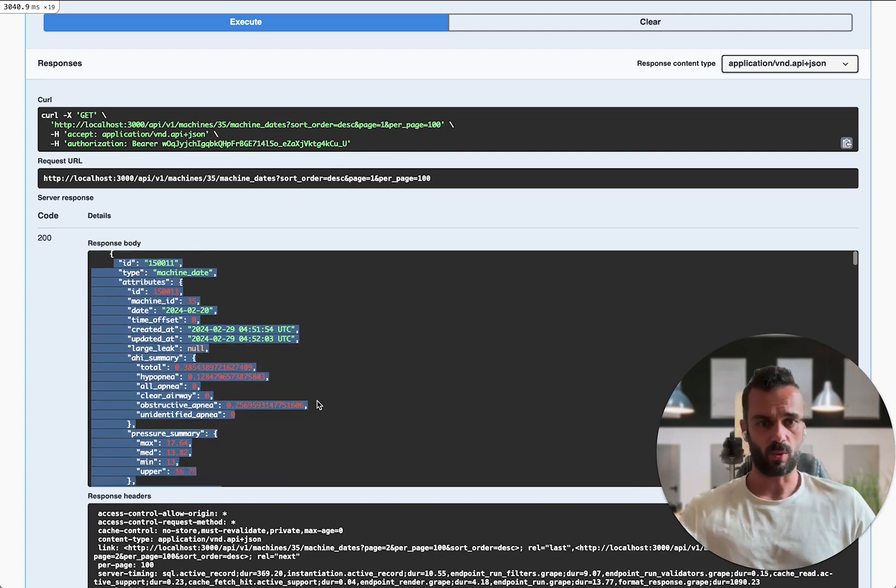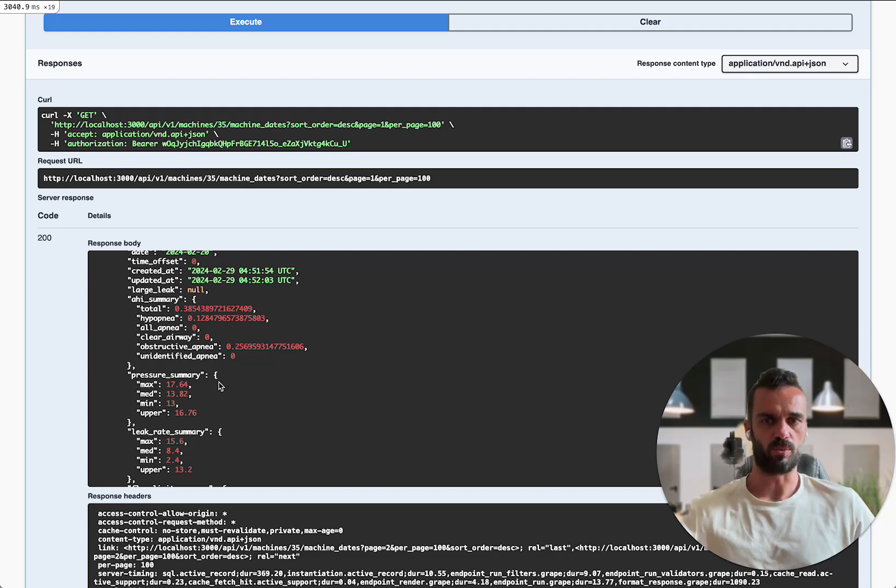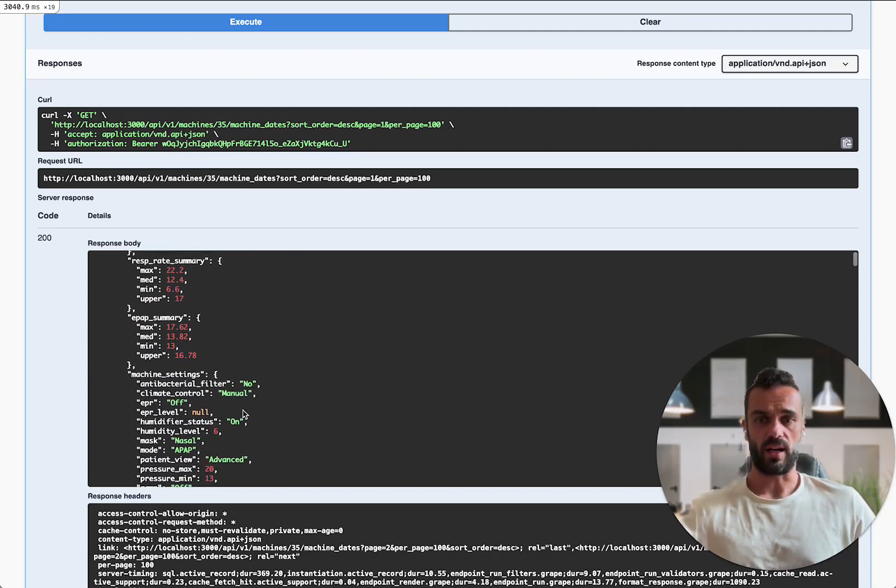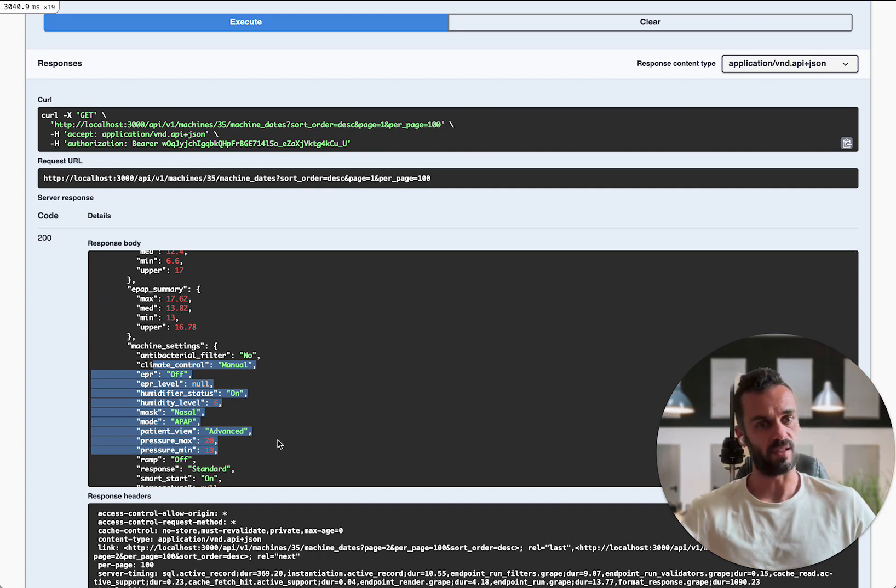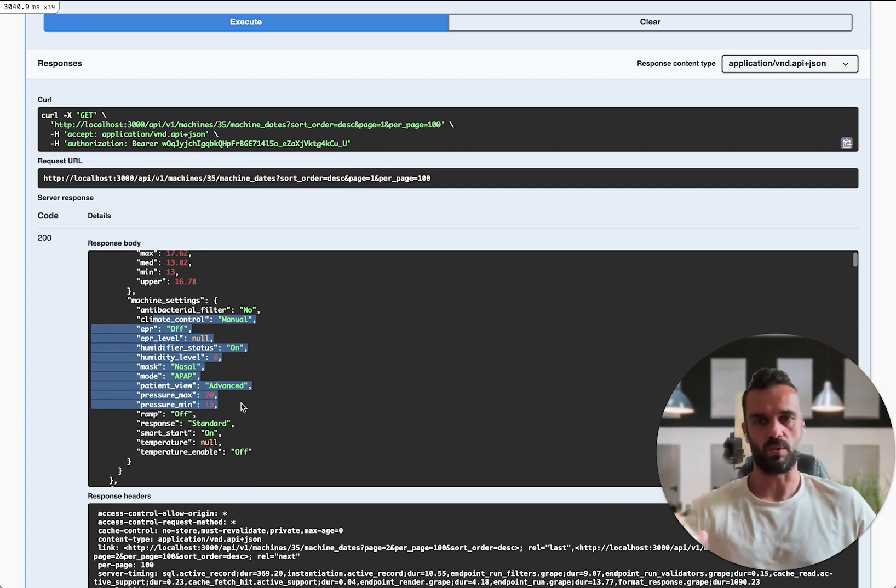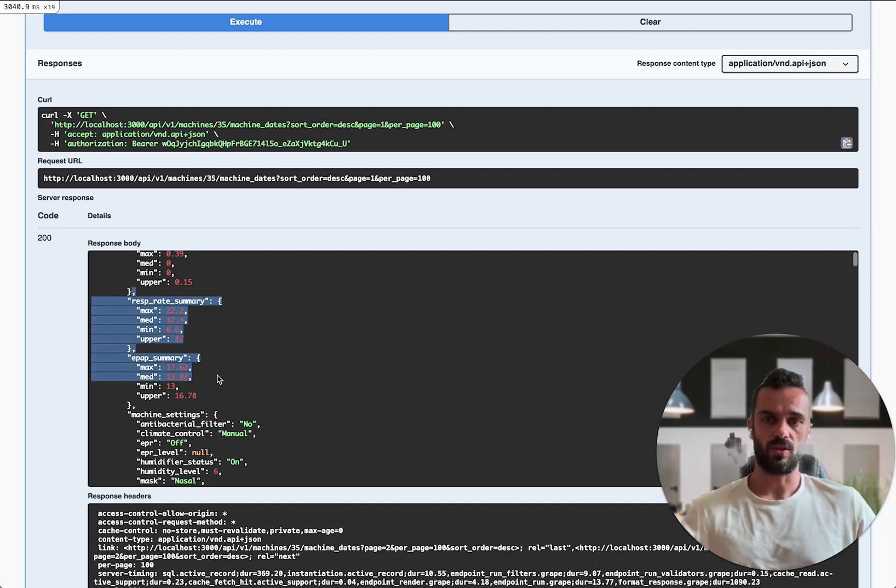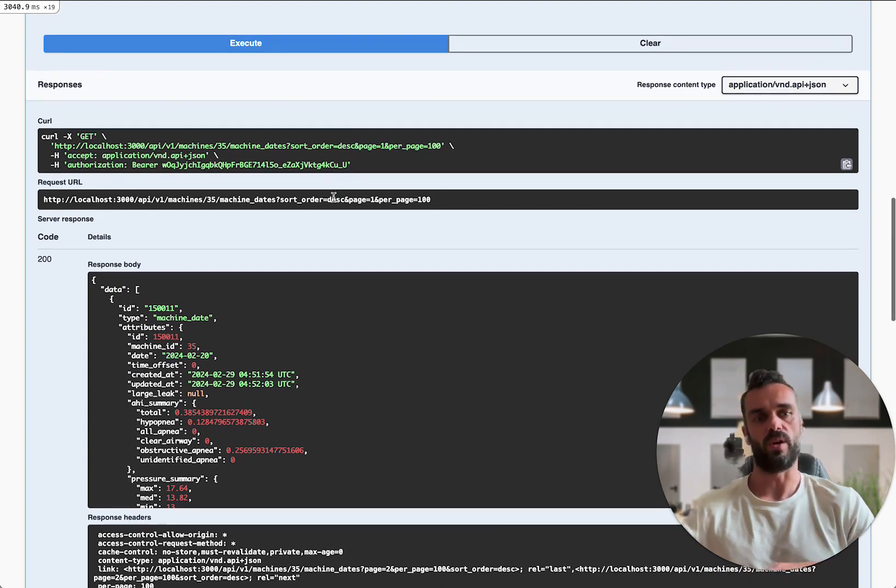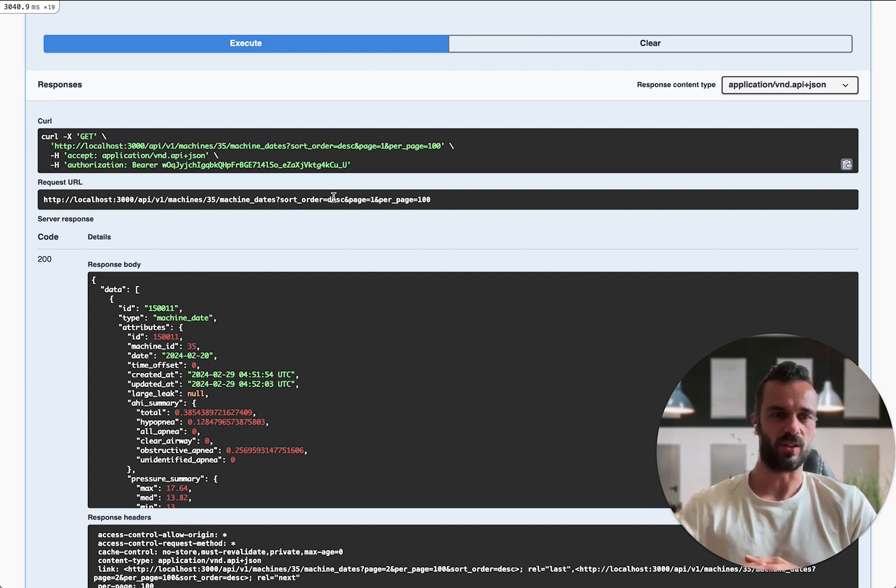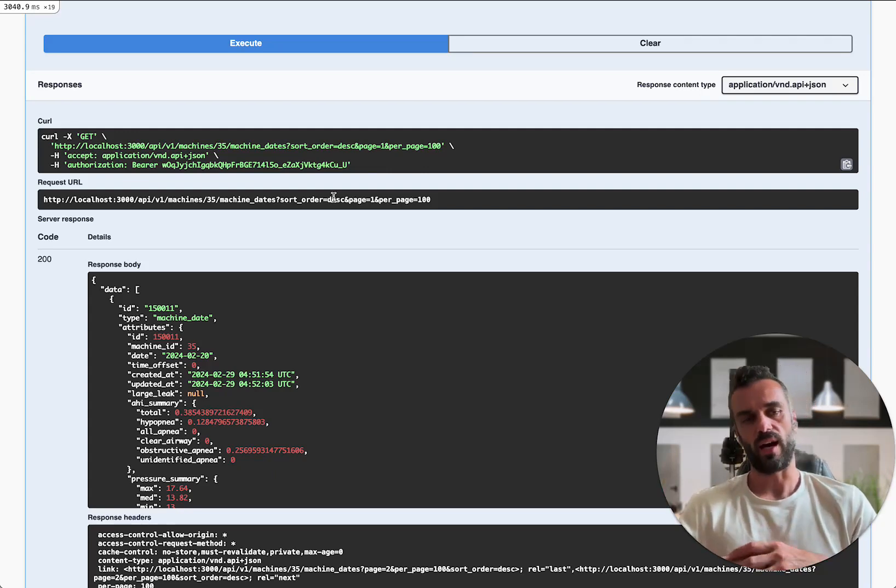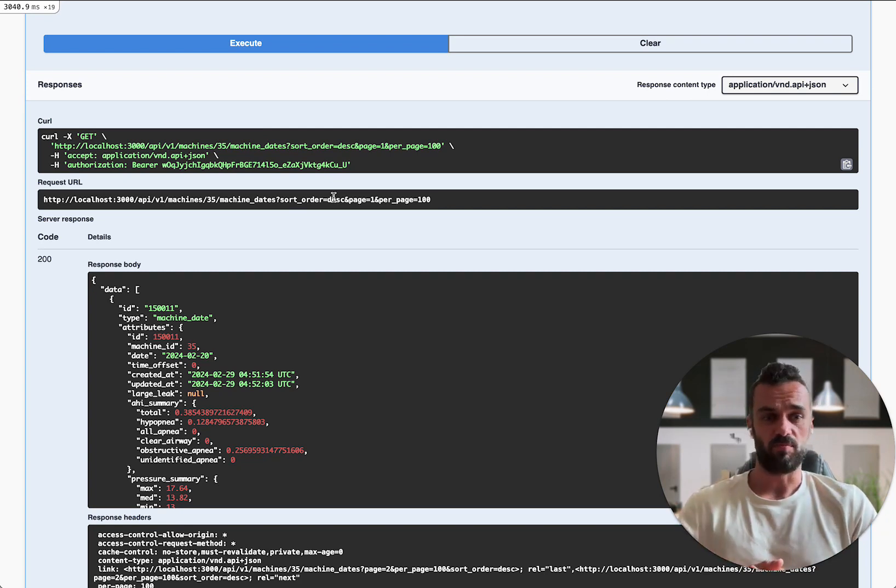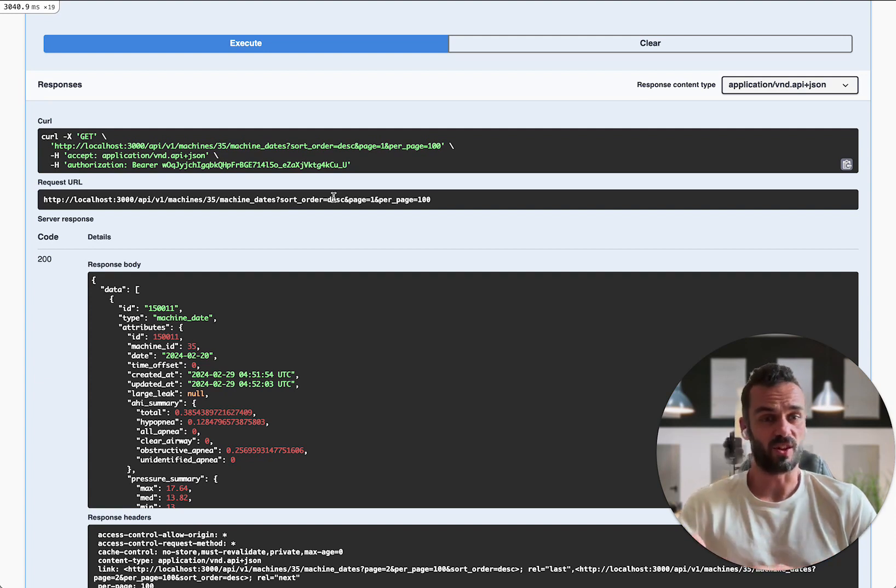Each individual machine date is going to look sort of like this down to about here is one machine date. You're seeing there's a whole bunch of summary information that you can get. Things like your average pressure, min, max leak rates, it's also going to show you all of the machine settings that you had on that particular date. If your machine settings were changing over time, you can be querying the API to get your machine settings on a given date. And then you can also be using the summary data that's coming out here in your own analysis. This is the point at which you could potentially feed this data into wherever you want it to go. It might start with like a Google doc with some calculations in there, or like a Google sheet, you could run it into some statistical analysis programs, anywhere you want to take that data so that you can run some sort of analysis on it.